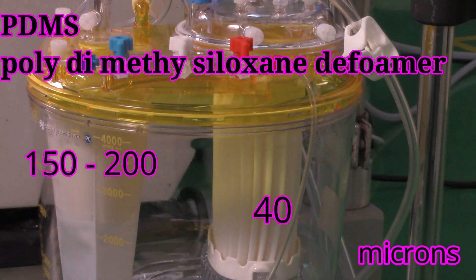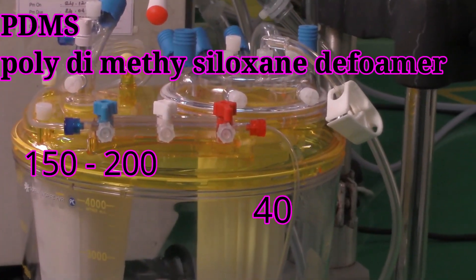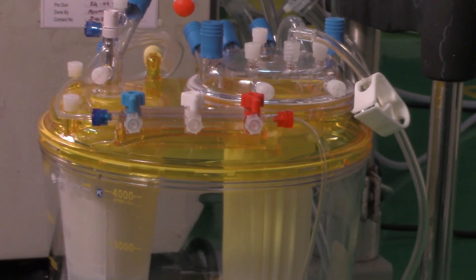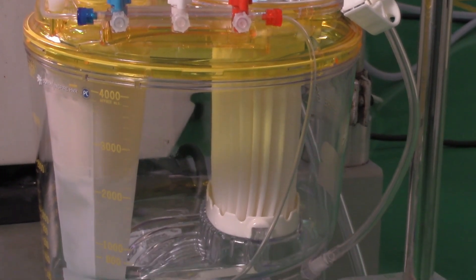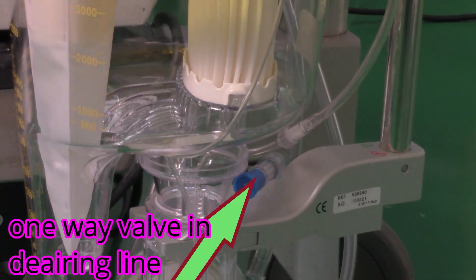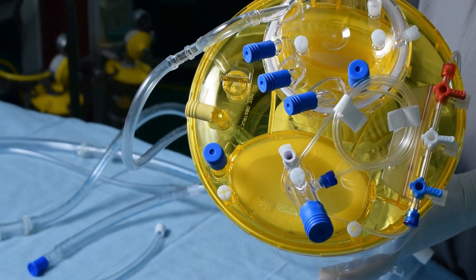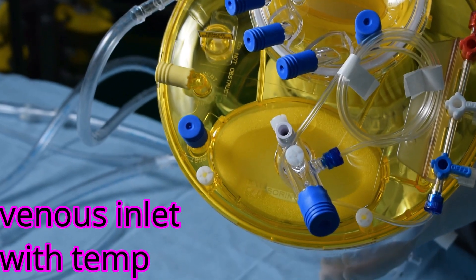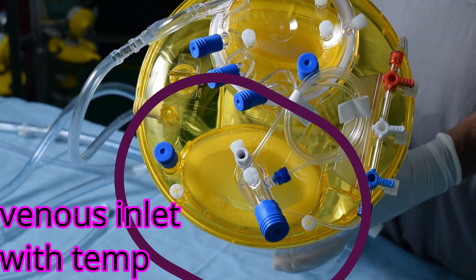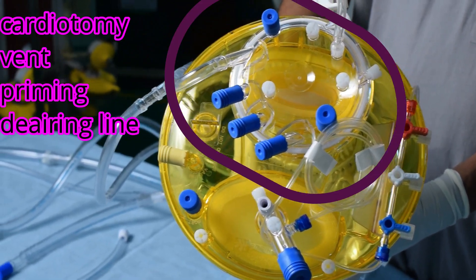The current construction of the hard-shell reservoir effectively removes not only debris and air bubbles at the blood-air interface but also removes micro-air in the venous flow. The blood in the reservoir is exposed to air surrounding the device, much the same way as in a bubble oxygenator reservoir. As blood volume in the reservoir increases, air is vented out to accommodate the blood; as blood volume decreases, air is pulled into the reservoir.